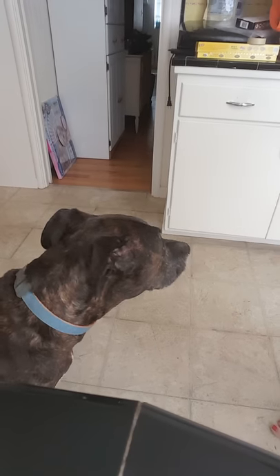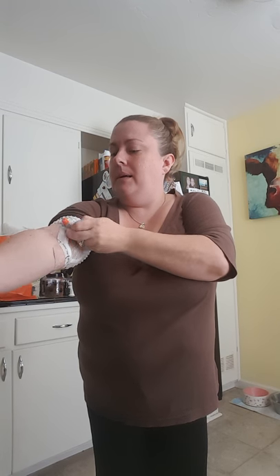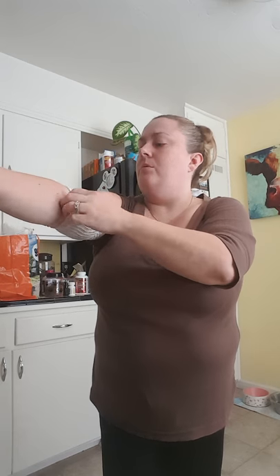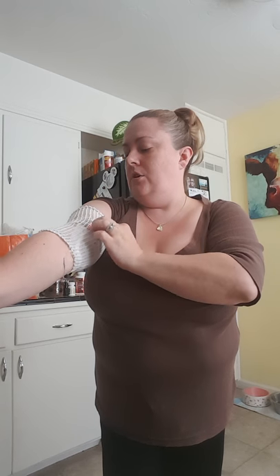I'm going to cover this back up quickly. When you get all your stuff from your medical supply place, they're going to give you these little stretchy armband things. Make sure you get extra because I like to change mine every two days. Right now it's already driving me nuts — it gets a little dirty from everyday wear, clothes fuzz gets on it. After I get out of the shower a new one goes on, but I do leave it on while I'm in the shower. It's not rocket science, but it's going to do the job.